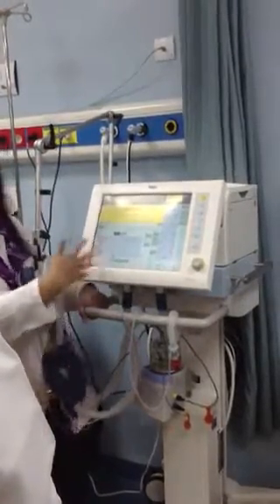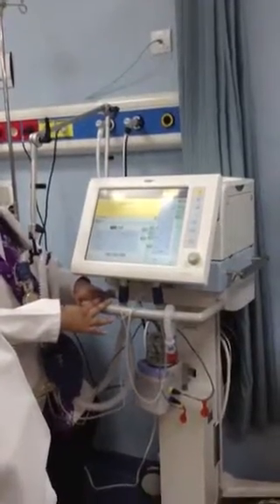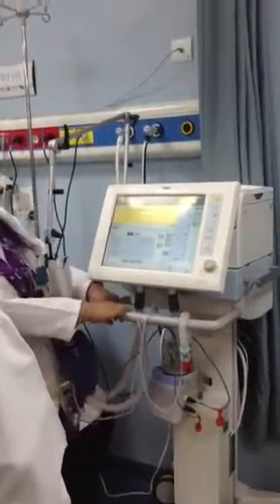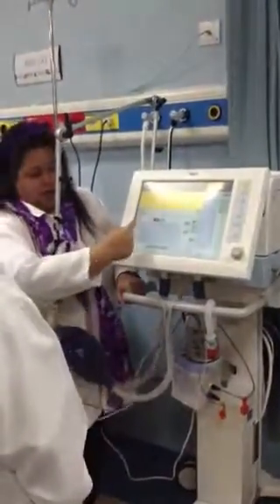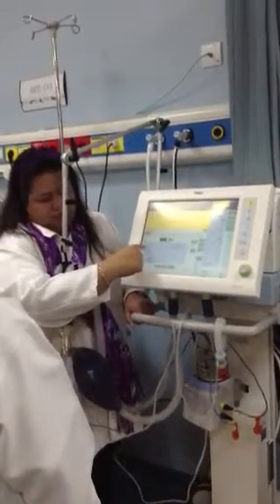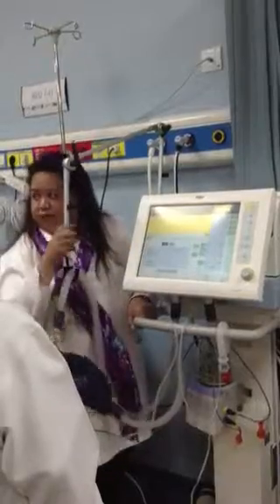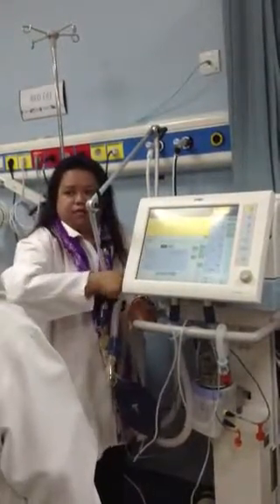May instructions naman siya. There is an instruction on how you will do the device check. How will we know that it is already functioning? There will be a check shown, meaning it's passing. If it's not passing, it will show F, failed. So call your biomed to check it.